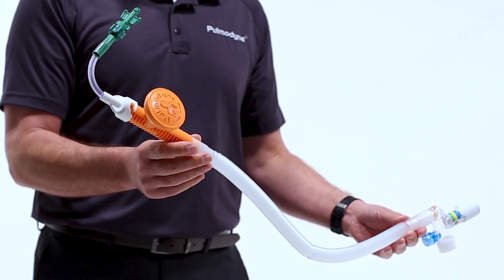Moving on, we come to the PEEP valve. As you can see, this is a three set PEEP with settings of 5, 7.5, and 10. The valve comes out of the factory set at 5. That means once you connect the O2 Max to an oxygen source and turn the cylinder on, you have instant effective CPAP at 5 of PEEP. It doesn't get any simpler than that. One of the distinct advantages of the O2 Max is that our PEEP is totally independent of the flow. That means when you increase the PEEP, the flow, FiO2, and cylinder run times are not affected. This is important in your sick patients that require high PEEP. In other systems, high PEEP requires an increase in liter flow, which in turn reduces cylinder run time. This is counterproductive in patients that need longer pressure times. Remember, in CPAP, time under pressure is key to better outcomes.